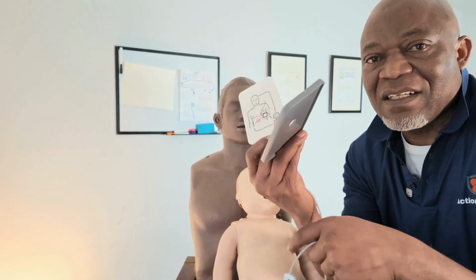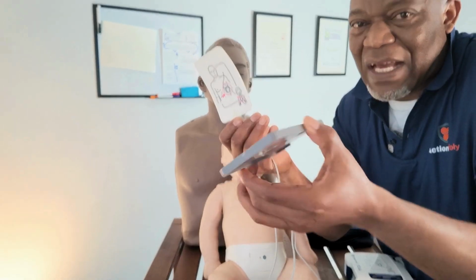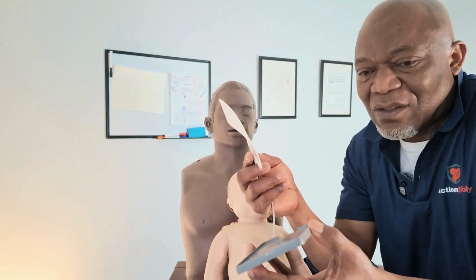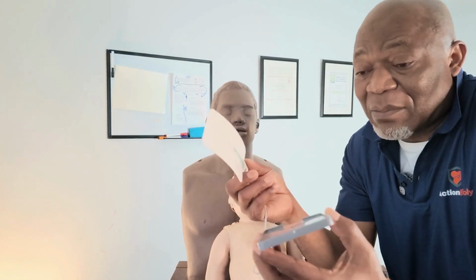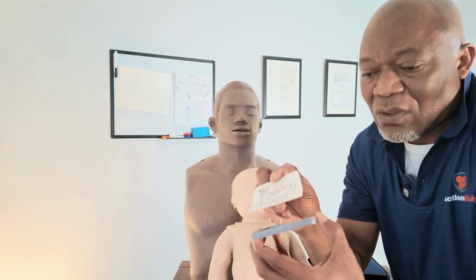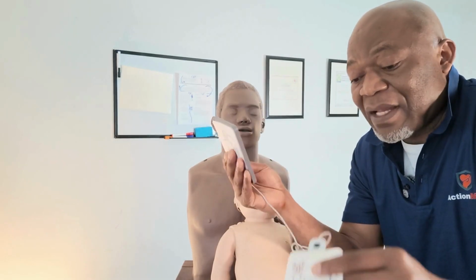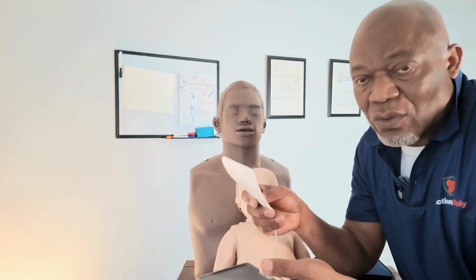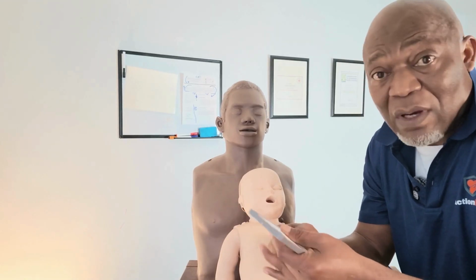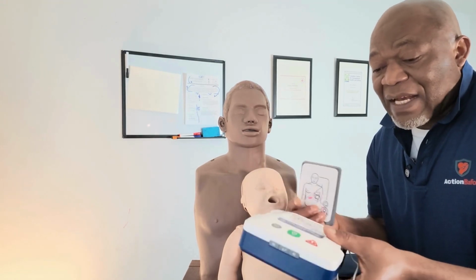Then you have these little things. When you are in an emergency, you don't care about this, because as soon as you remove it, you just leave it down there. But for me, as I'm on demo, I'm practicing, so I need to put it back because I need to show you how to apply it on a person. Here I have a mannequin, so I'll show you how to apply it on a person when you are about to use an AED.